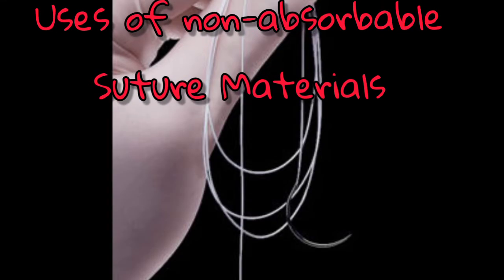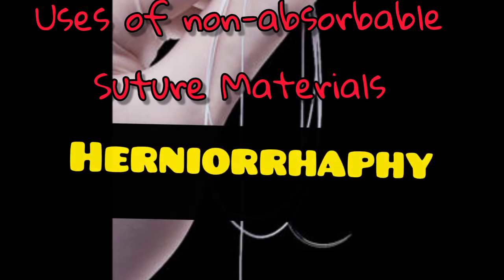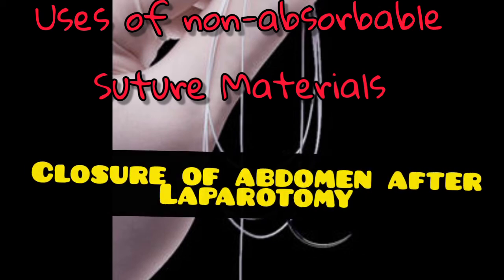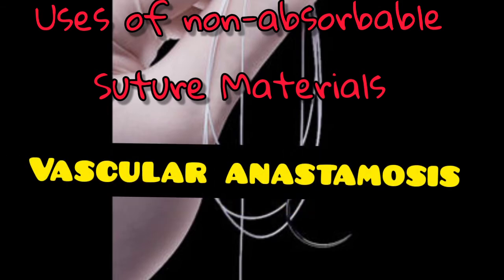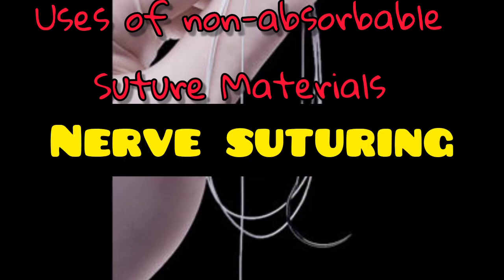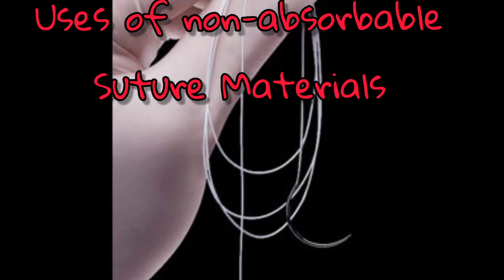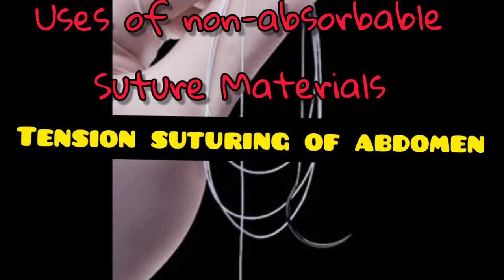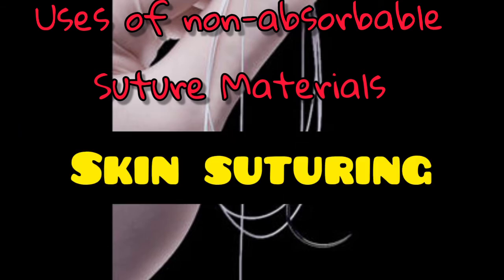Uses of non-absorbable suture materials: used in herniorrhaphy, closure of abdomen after laparotomy, vascular anastomosis, nerve suturing, tendon suturing, tension suturing of the abdomen, and skin suturing.